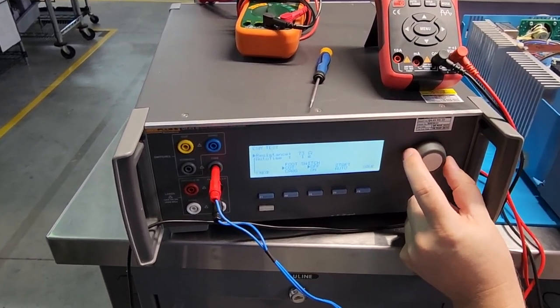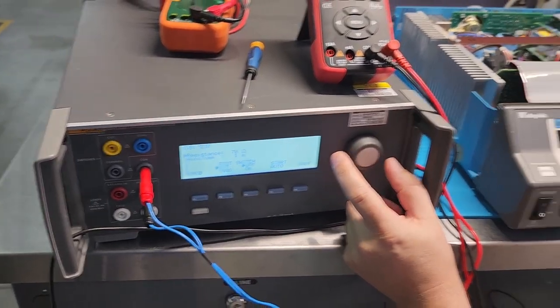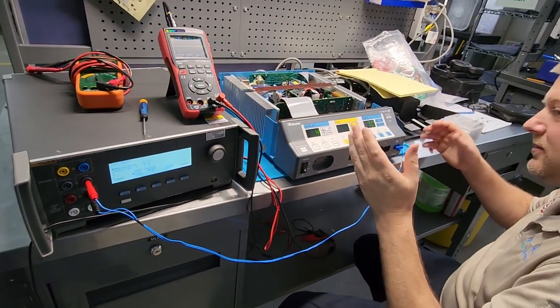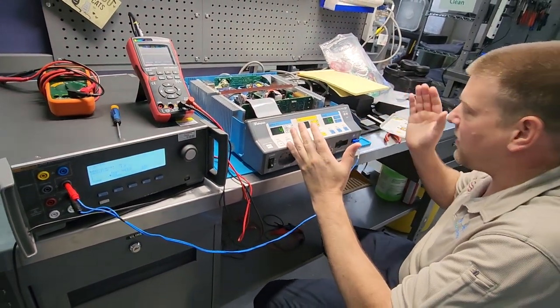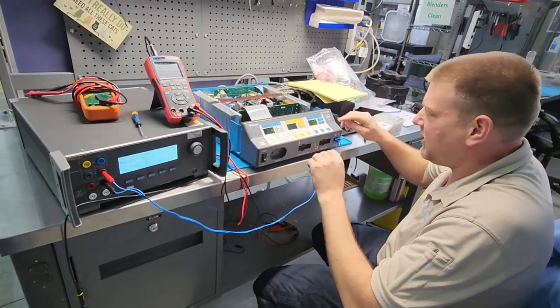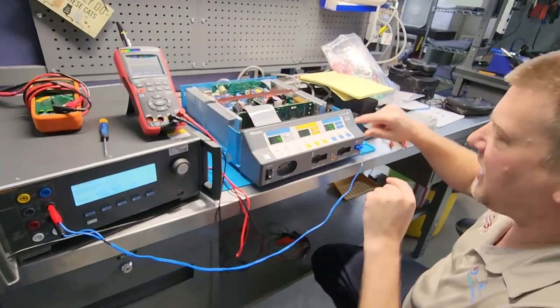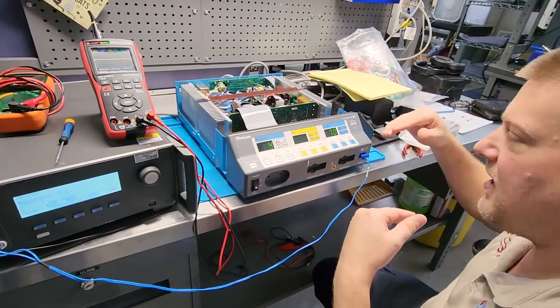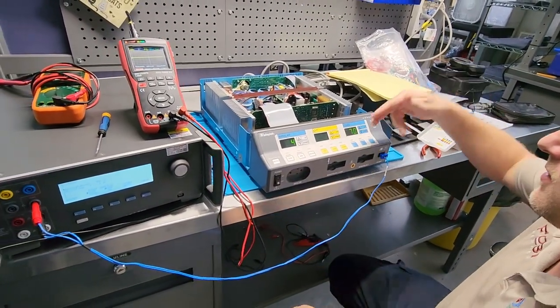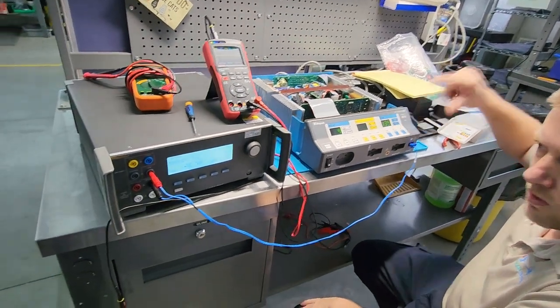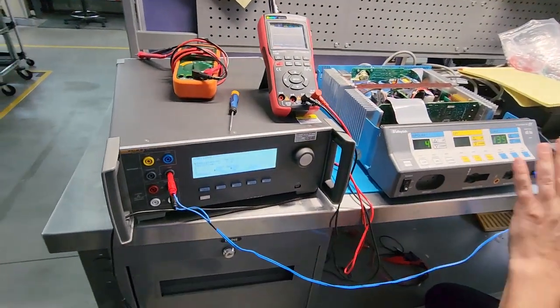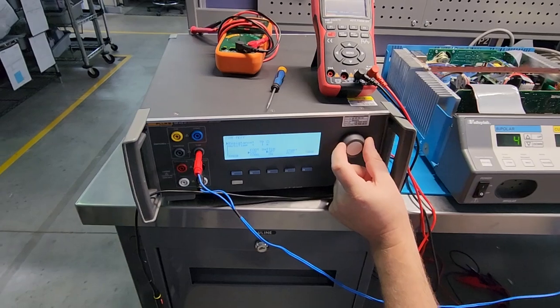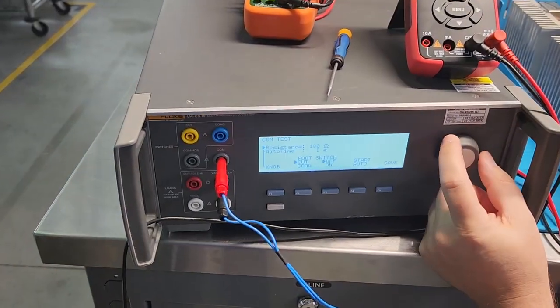All right. So the range that our REM normally is looking for is going to be between like eight or nine ohms and 135 ohms is the upper range. So you can tell right now what we're doing is we're calibrating the mid value. So half of 135 is 70. So here we go. So we just calibrated at 70 ohms. Now let's go ahead and take it up to 135.